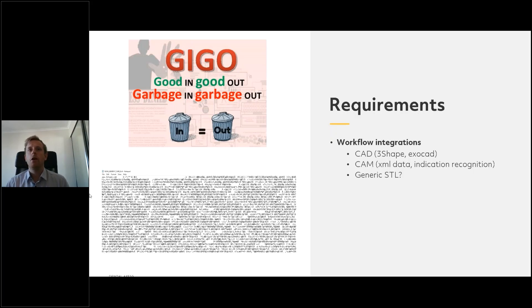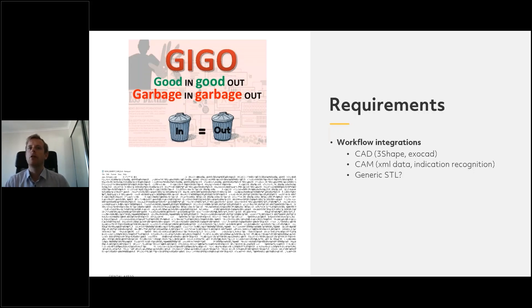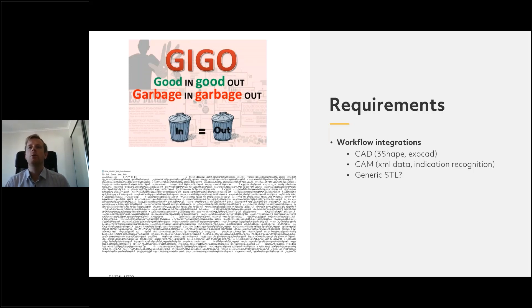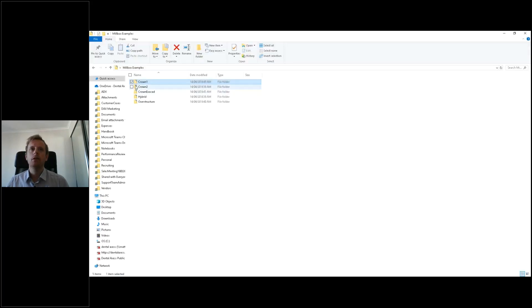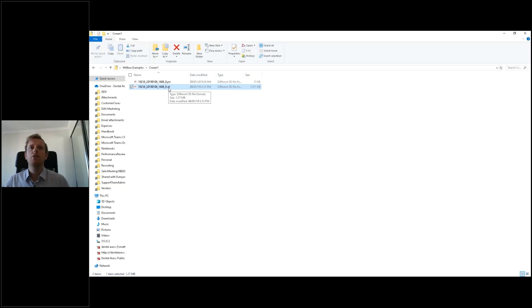So let's talk about more requirements — garbage in, garbage out. If we give the software the right information, we're going to get the result we want. Is your CAD software — your 3Shape or ExoCAD — integrated with Millbox? Yes, provided you have the right settings in the background. What we need is some XML data and maybe indication recognition. Here's an example of a crown — an STL file. Many of you will know the STL file is the standard for almost all 3D softwares. We've also got a PTS file — PTS is a condensation of points.